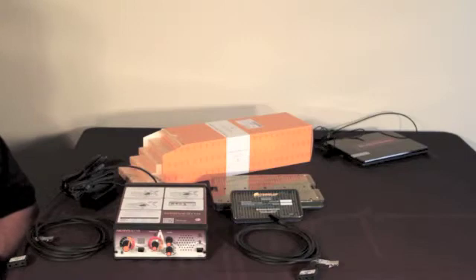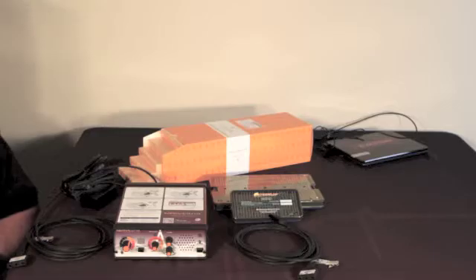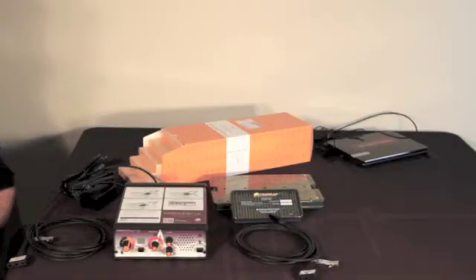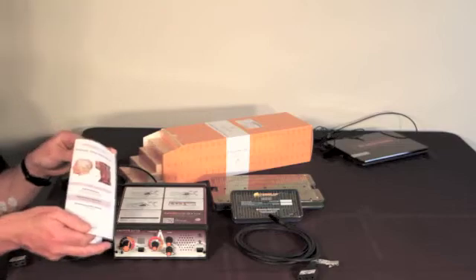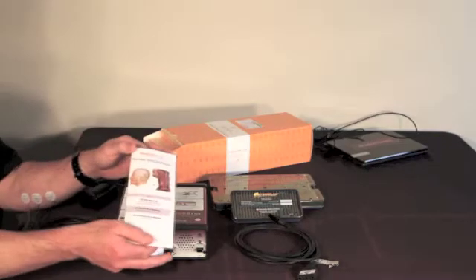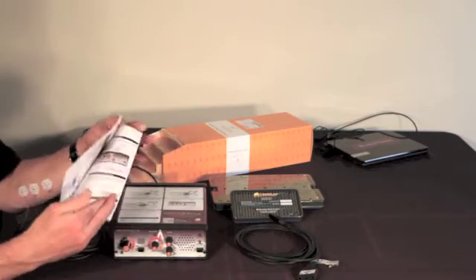Now I'd like to share with you the setup procedure for the Nirvana system prior to a surgery. Every Nirvana surgery kit comes with setup instructions like this laminated setup I have here.